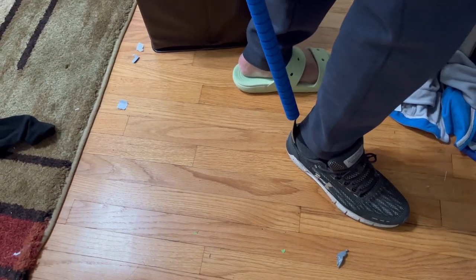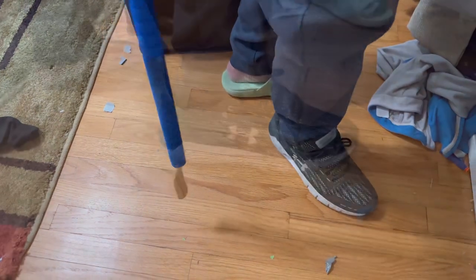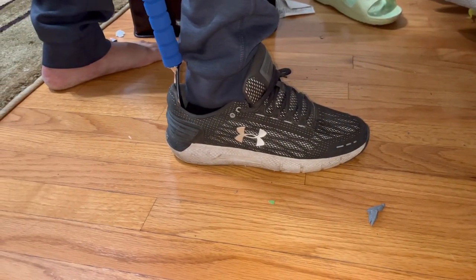Here I'm trying to put it in for my shoes and it goes really well. You can see how helpful it is. This is a close-up. So it's pretty nice.